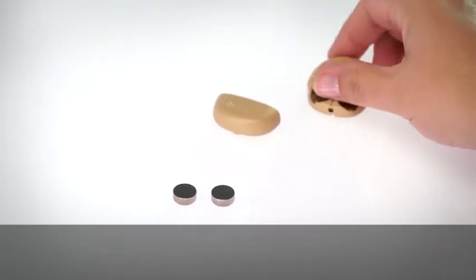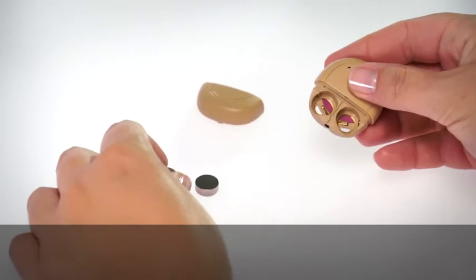Insert the batteries into the holder with the flat side facing up.